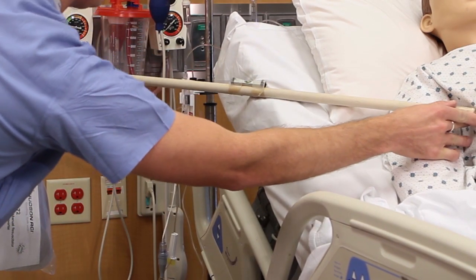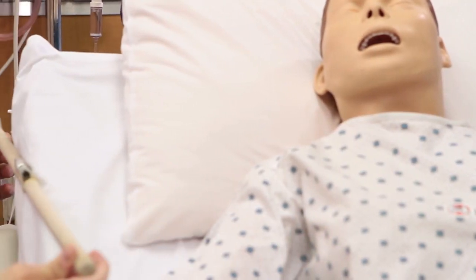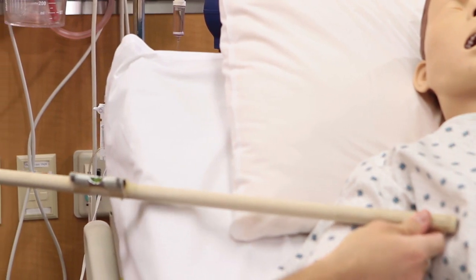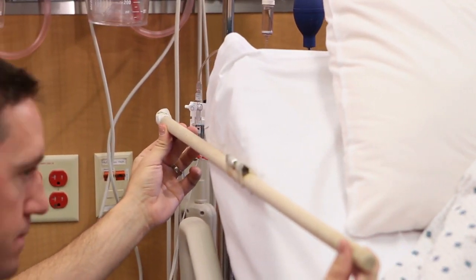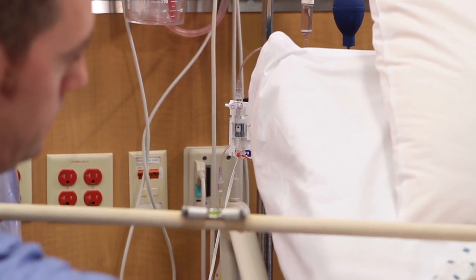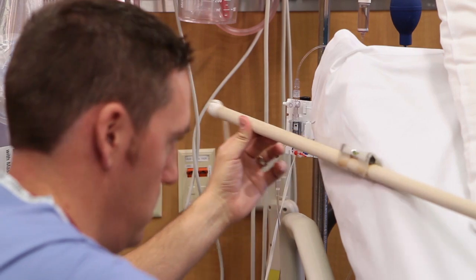When this happened, an obstacle was created for the stick to need to level around. The obstacle is the mattress when the head of bed is raised. The stick is limited to line-of-sight leveling and fails with any obstacle, leaving the practitioner to eyeball it, omitting any true sense of accuracy.